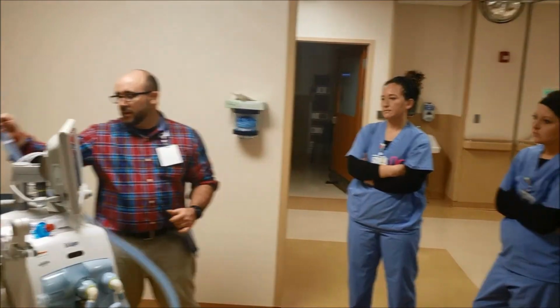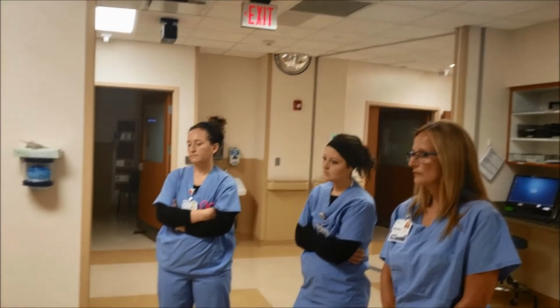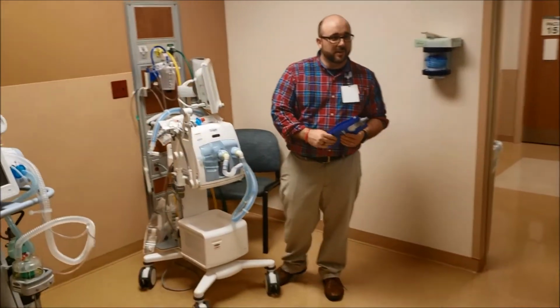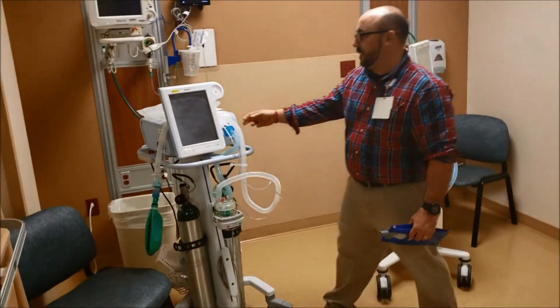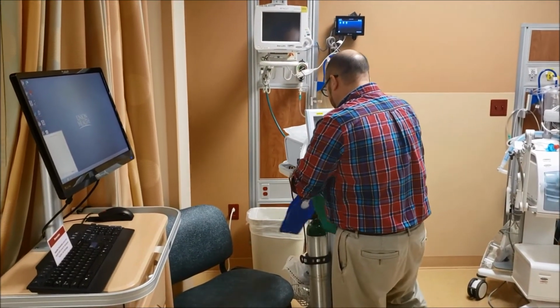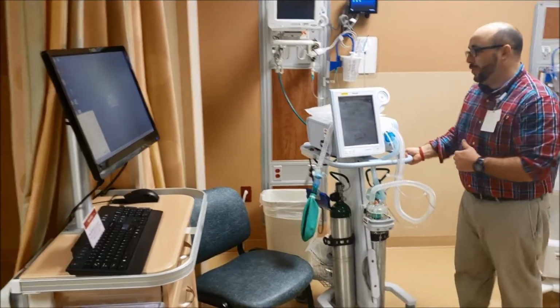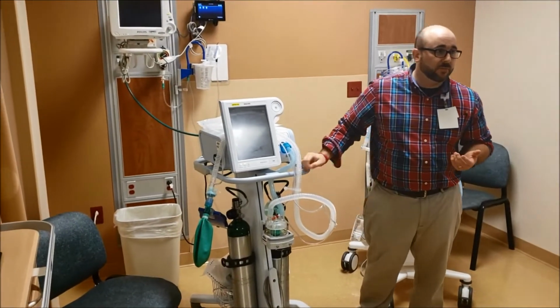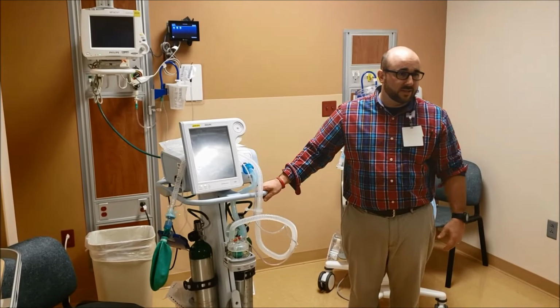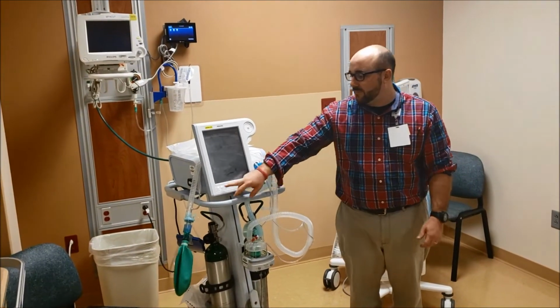So the next thing I'm gonna show you is this V60, and how this V60 can be used as a ventilator. This is a BiPAP or CPAP, we'll do both. But these are V60. This is like the new BiPAPs. We actually have 12 of them in the budget for next year to try to get rid of the old brown boxes because they're not as reliable as these are.